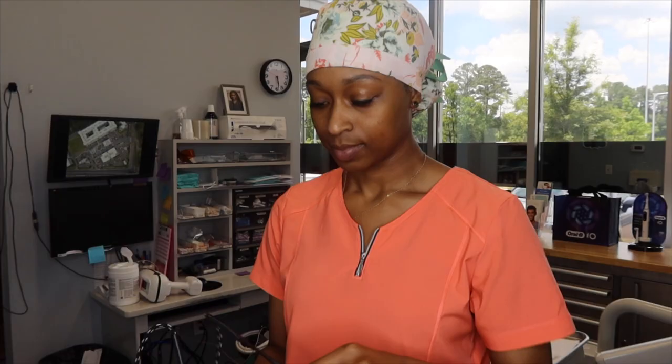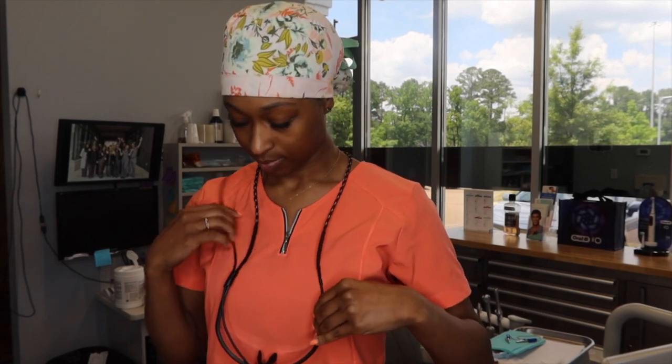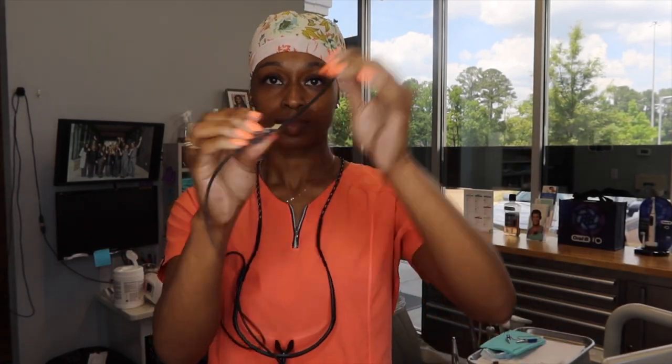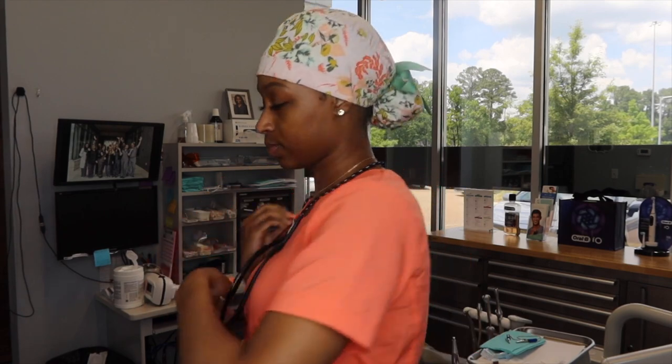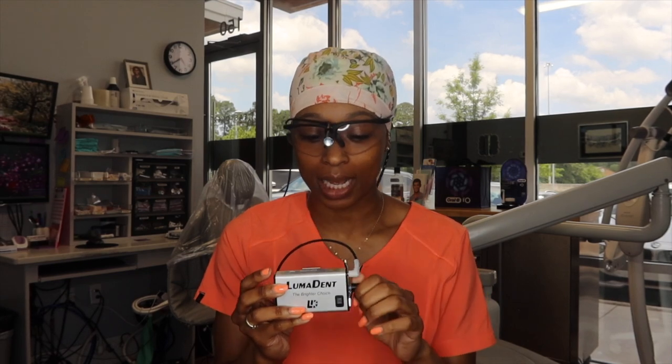As you can see, I'll put it on — it has a cord with a string that I can clip to the back of my shirt, throw underneath my arm, connect it to my light source, and then click this button and I have a light. There it is — a little headlight. I can lighten it, dim it, make it brighter. And of course you have to charge this just like you would a cell phone battery.